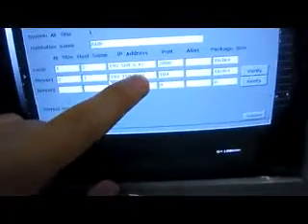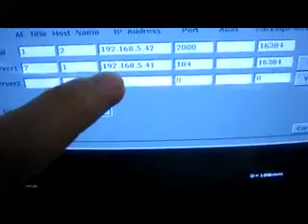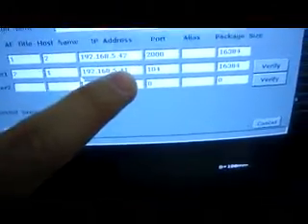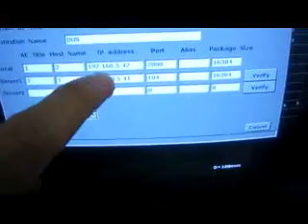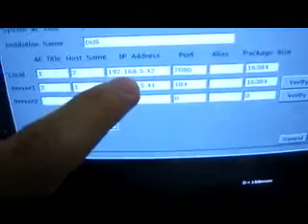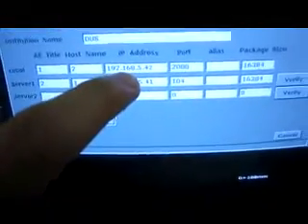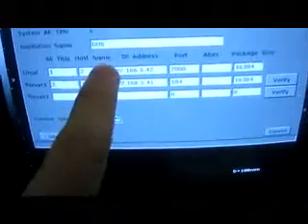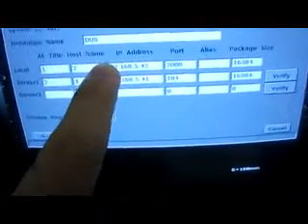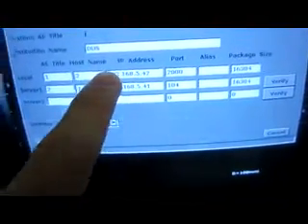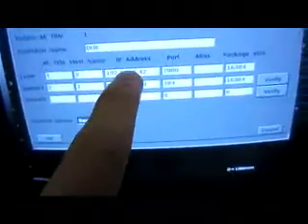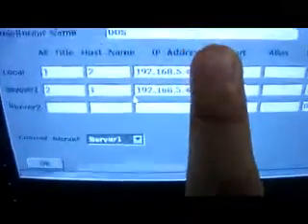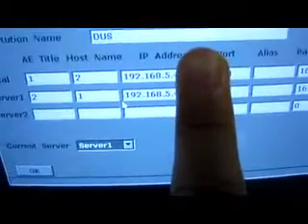Now we can see it is 192.168.5.41. And the Local IP of this ultrasound machine should have the same first three segments, like 192.168.5. The three segments are the same.